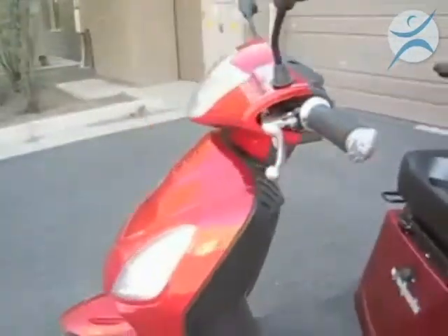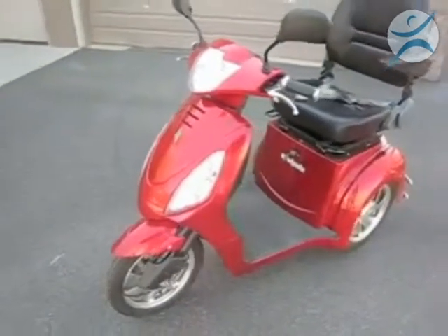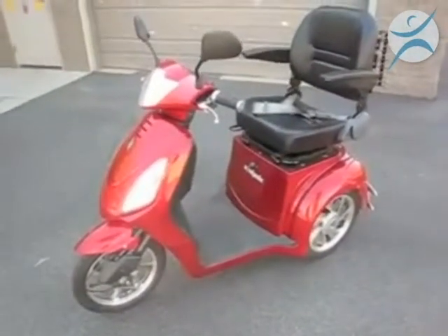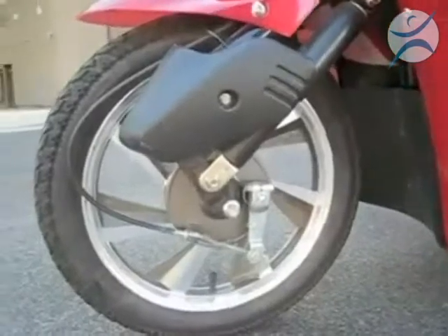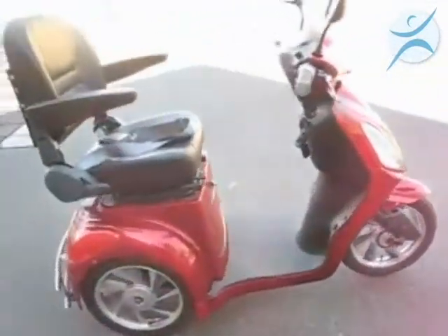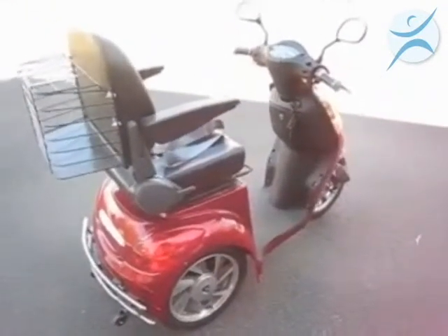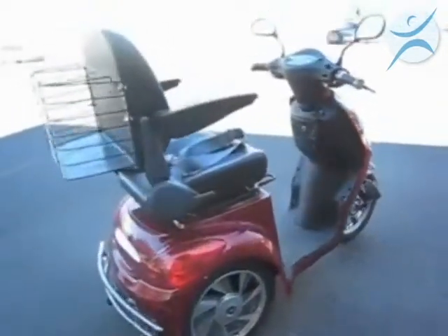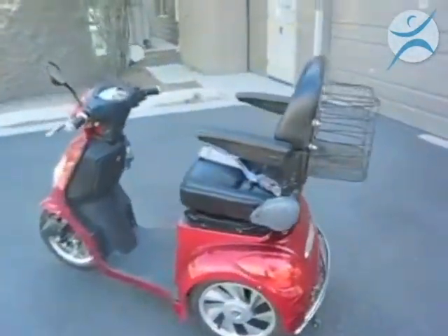Overall, the EW36 has proven to be very dependable and very comfortable to ride. There are shocks on both the two rear wheels and the front suspension fork, so there's a lot of shock absorbing within this product. We also have three brakes — one on the front wheel and two on the back wheels. We also have a fourth braking system, which is our computer controller — our ABS system. If the alarm is activated and somebody touches your scooter, the ABS controller system will kick in and actually lock up the scooter so you can't move it at all.